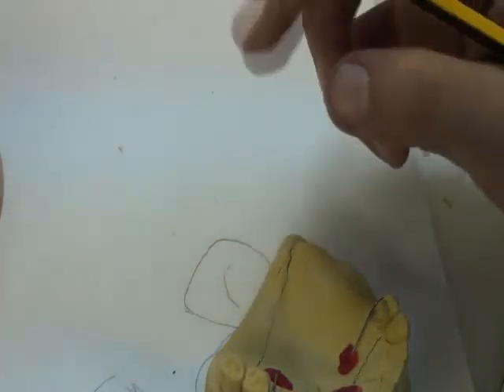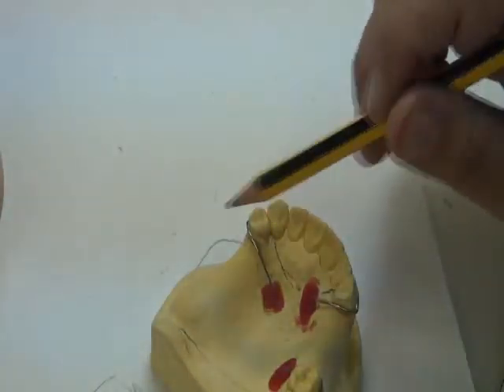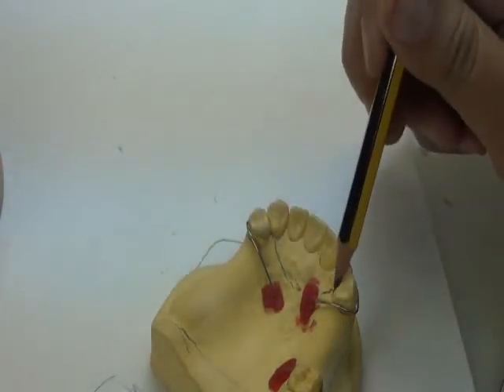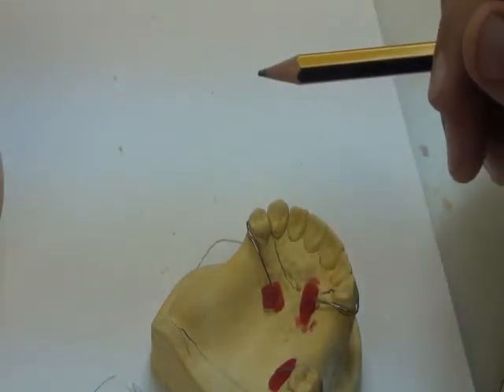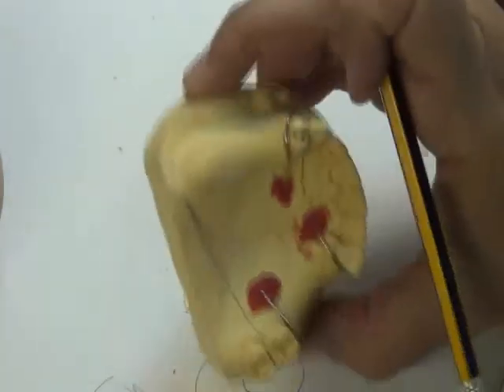We will talk about this today in the lecture in further detail. But for your design, for the upper that you have, we go from one abutment to the other abutment, clearing this area by more than 6 to 8 millimeters, to not make any plaque accumulation. So this is the extension of the base.